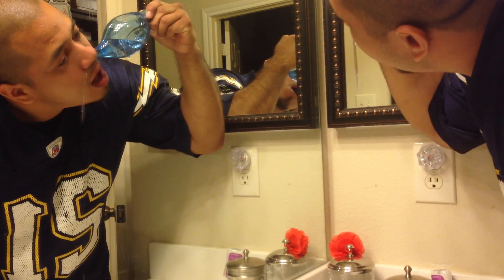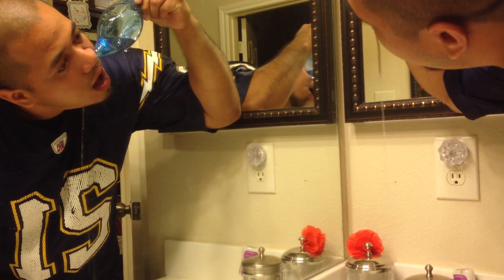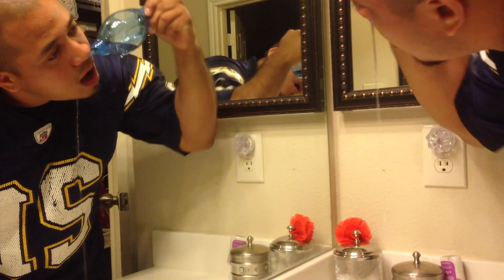Breathe out of your mouth. White stuff came up. Okay, you don't have to pour it all off. It's good, it's okay. He'll do the other side.